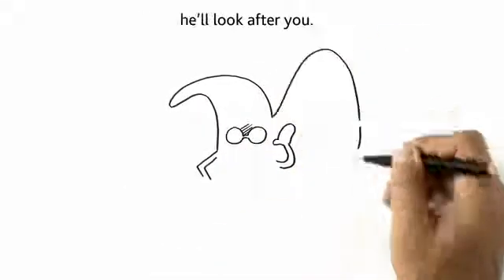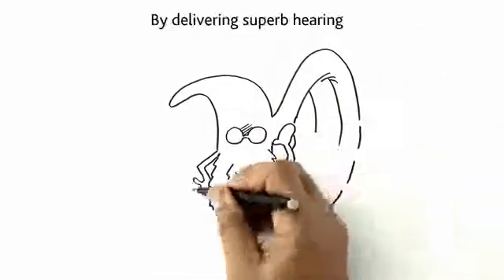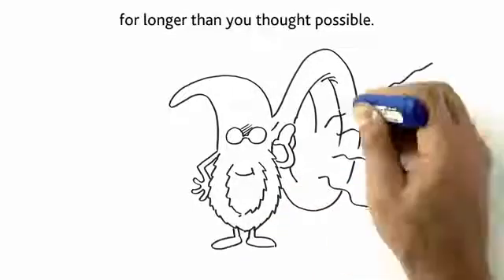If you look after your processor, he'll look after you, by delivering superb hearing for longer than you thought possible.